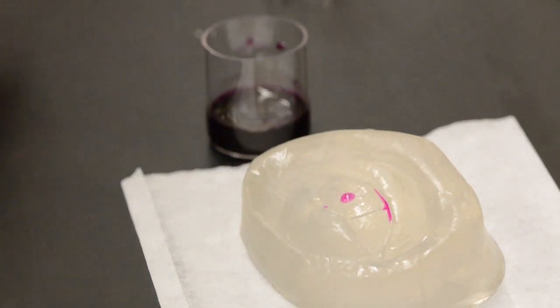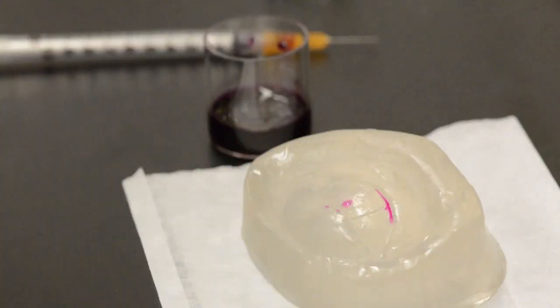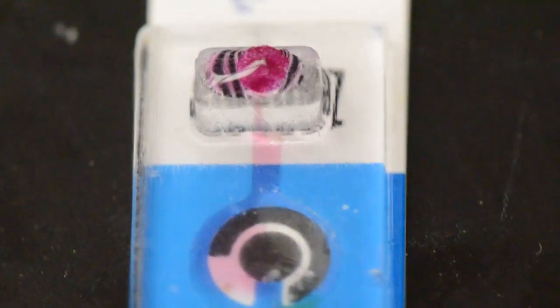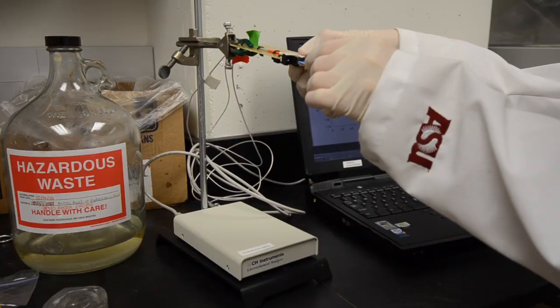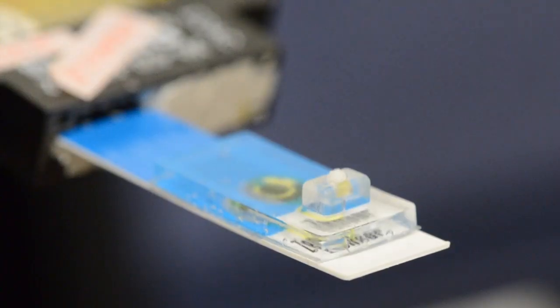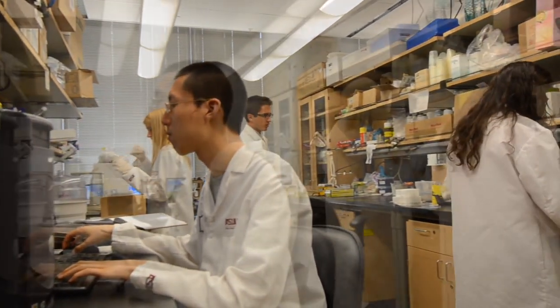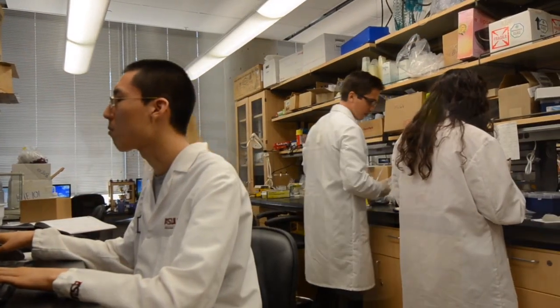One of them is just how do you get the fluid off the surface of your eye and how do you get the correct amount of fluid each time. We found some really promising materials that are capable of doing that and at the same time being biocompatible and being safe to the human eye. It's a challenge but it's fun.